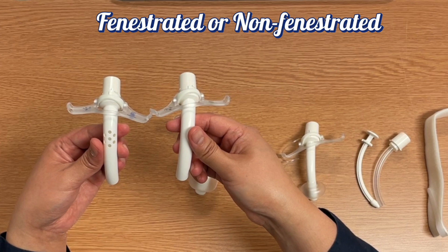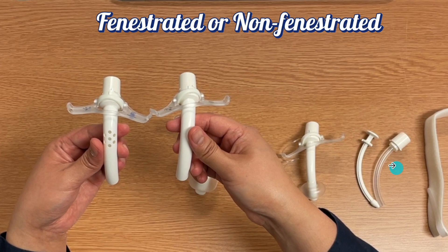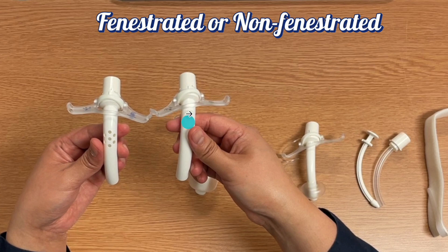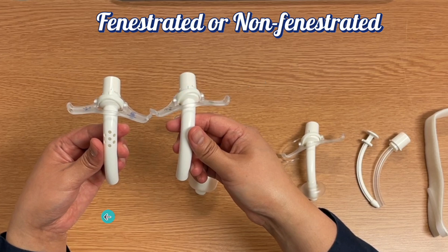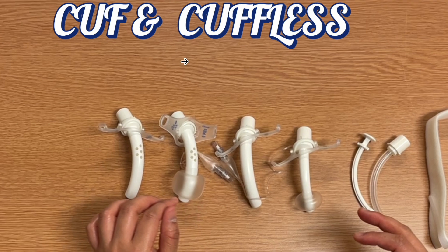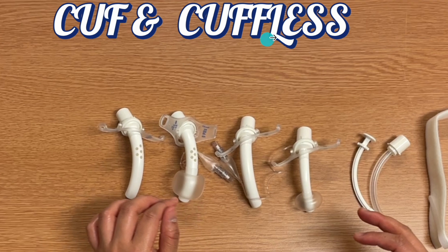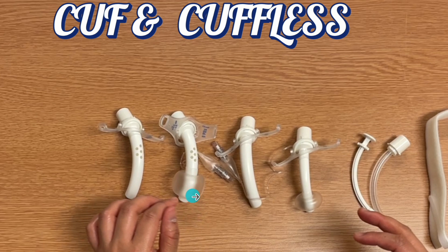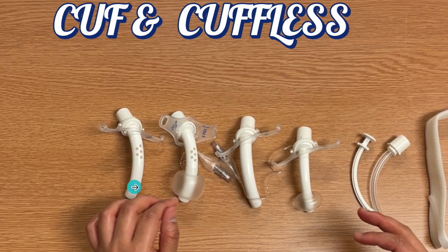The tracheostomy is inserted at the second ring of the trachea. There are different types of tracheostomy. Some are fenestrated — meaning they have an opening — and some are non-fenestrated. Some tracheostomies are cuffed, meaning they have a balloon, and some are cuffless with no balloon.